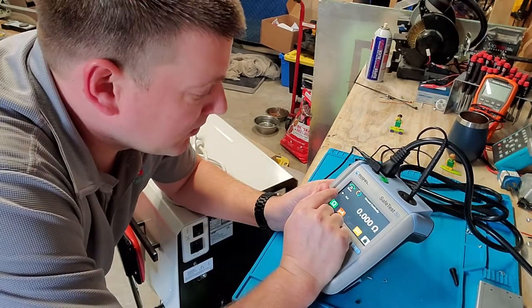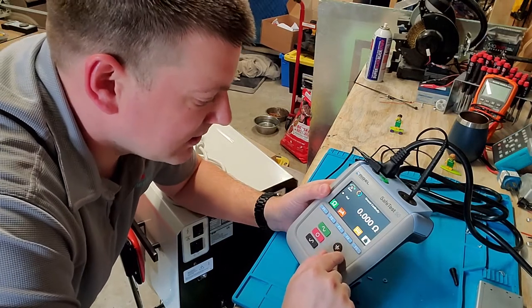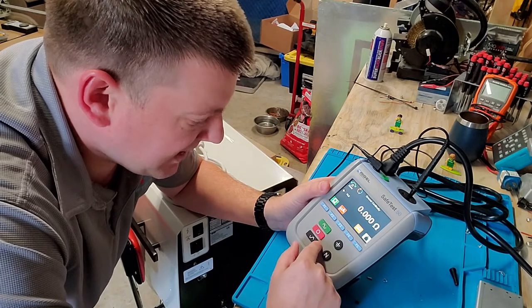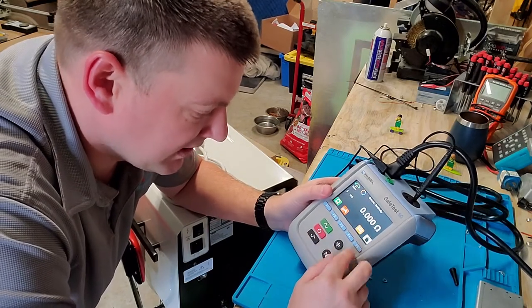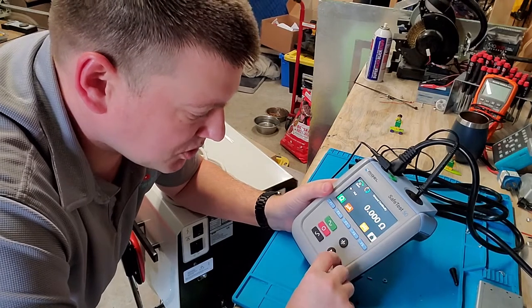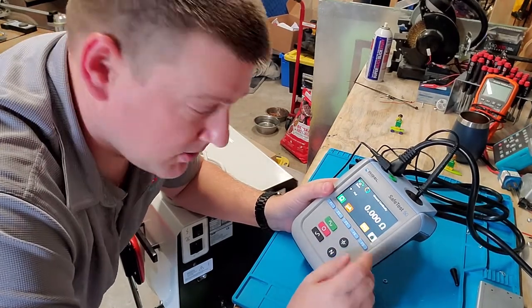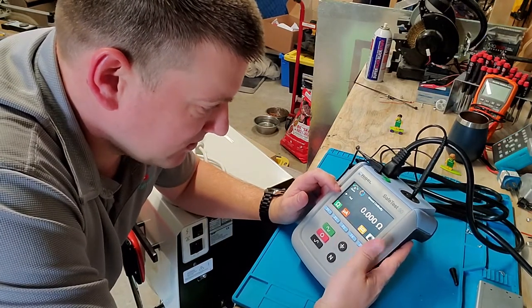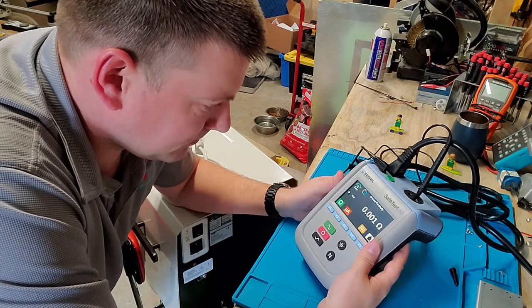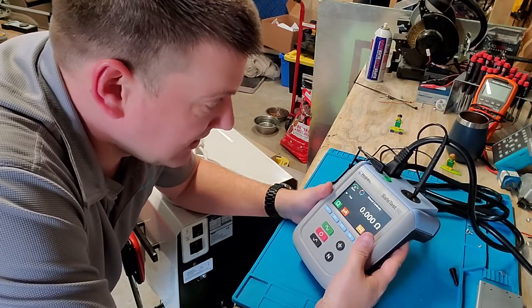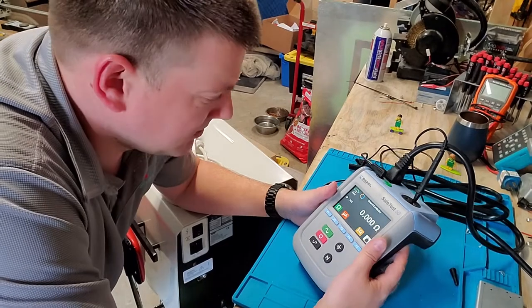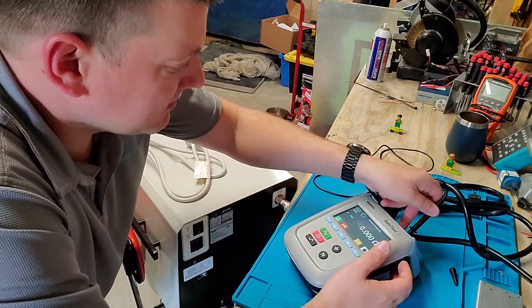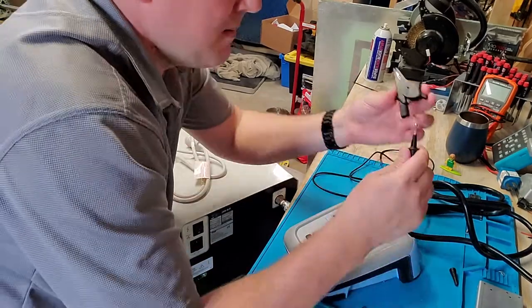If I'm going to zero out between this point and this point, I would assume you stick it straight in the ground outlet and here's the rest of my cable. These are your single fault keys and these ones here are probably to activate your tests like normal polarity, reverse polarity. I've got ground and neutral, probably for open ground, open neutral. It says to press the ground button to zero it out. Here it is, that one's good.